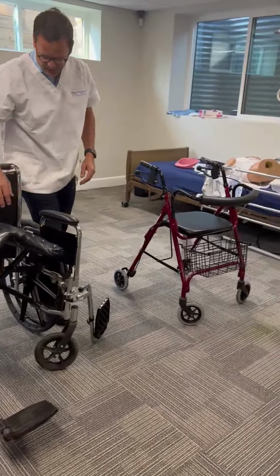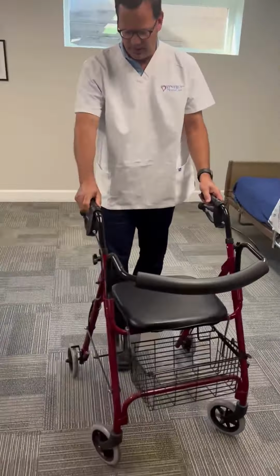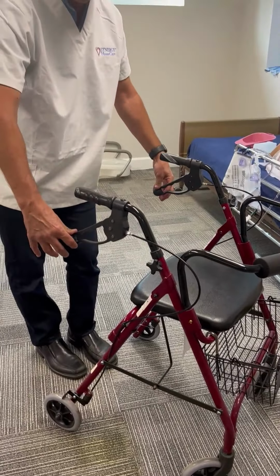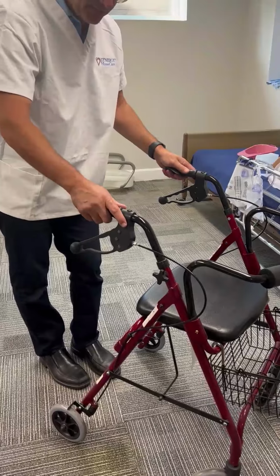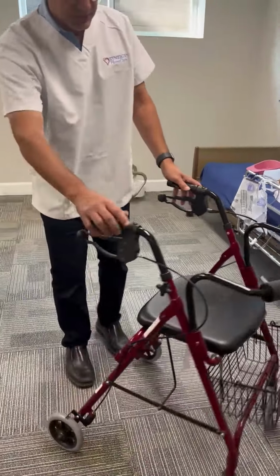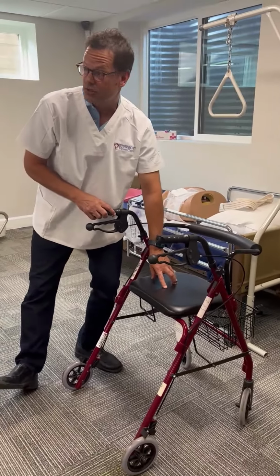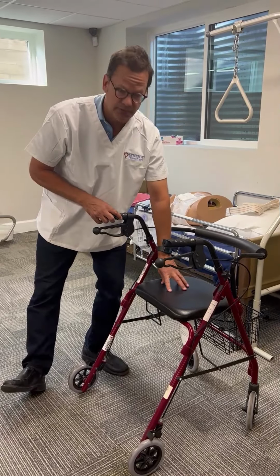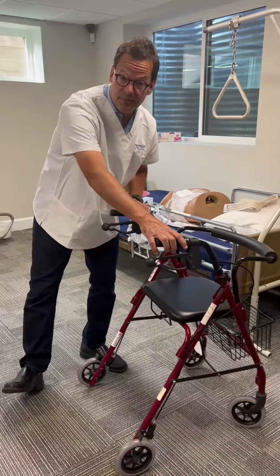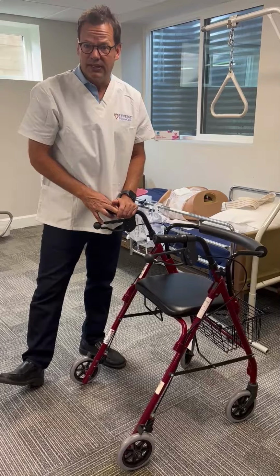This is a walker. The important elements of the walker, first of all, there's brakes, and to engage the brakes, you just push them down, and that secures the walker. The other important element of the walker is you will commonly see a little seat here that is not used to transfer somebody. It is used for them to rest. You wouldn't want to have them sitting and move them with the seat, but it would be a place that they could safely rest if they needed to.